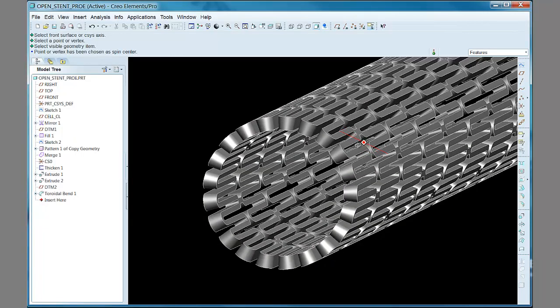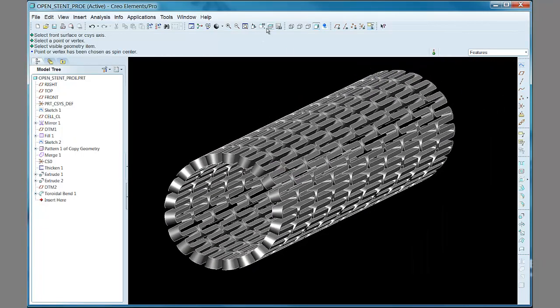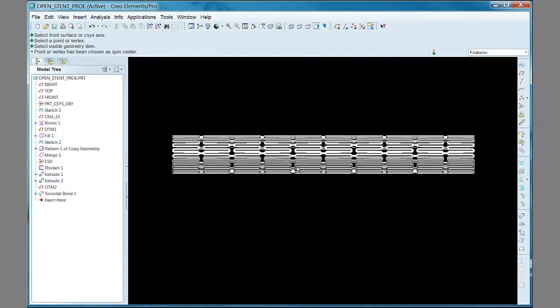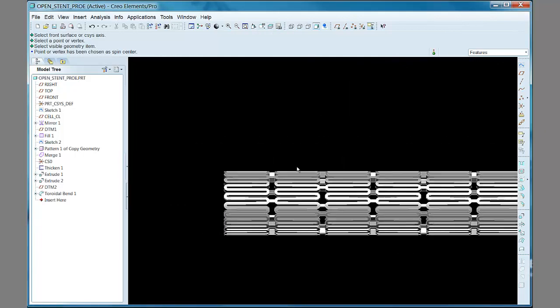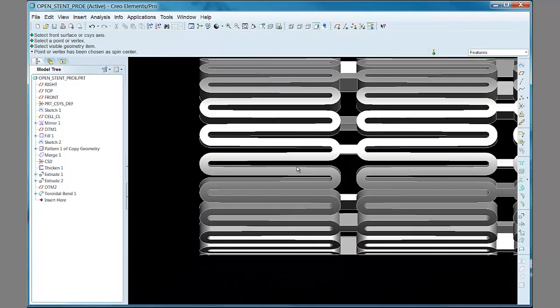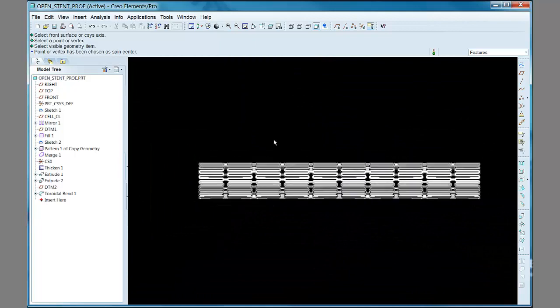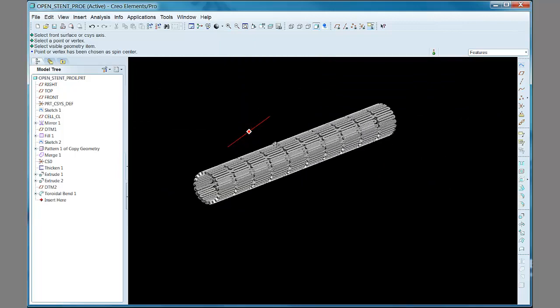To create the model, a repeating pattern of basic cells was constructed. Another series of intermittent bridges connects the basic cells to each other. This creates a continuous solid model.